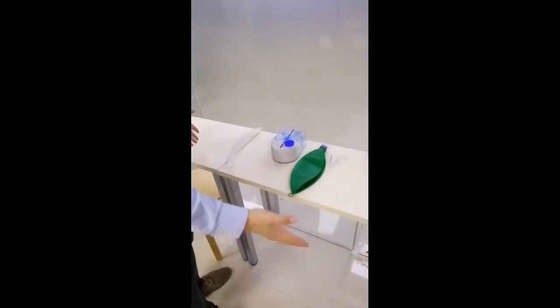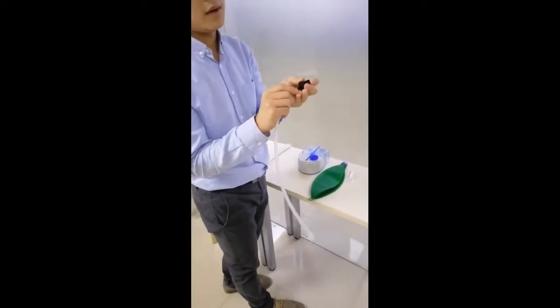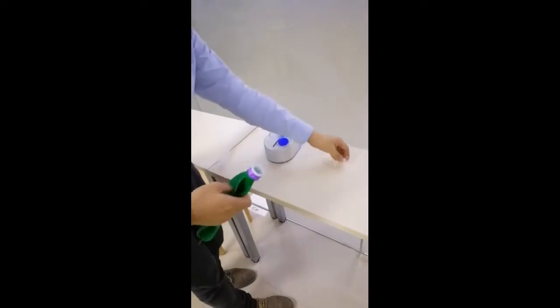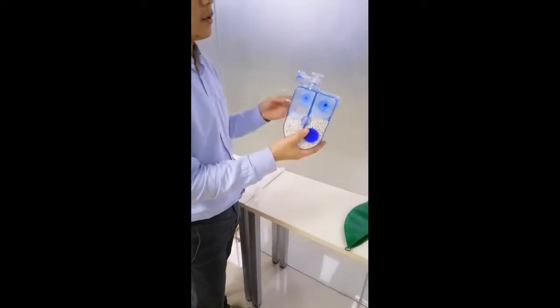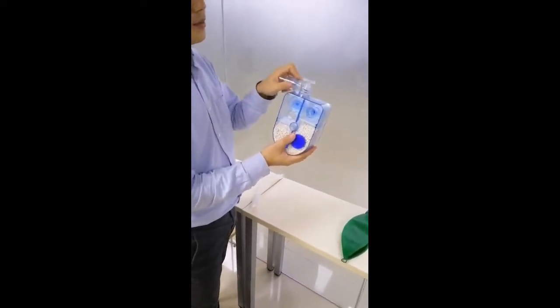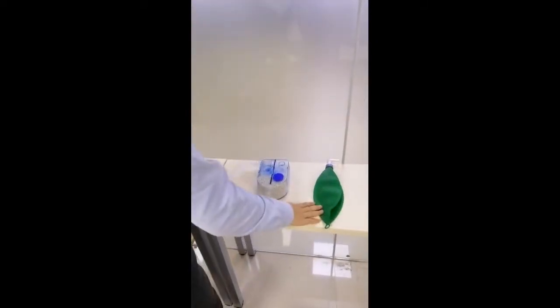There are several spare parts. The first is these two — connect with this one. The first one and the second. The breathing bag — connect. And third, this is the absorber. We connect this part, and then use the tube connected. So finally, you can see here is the tube, here is the breathing bag, and here is the absorber.